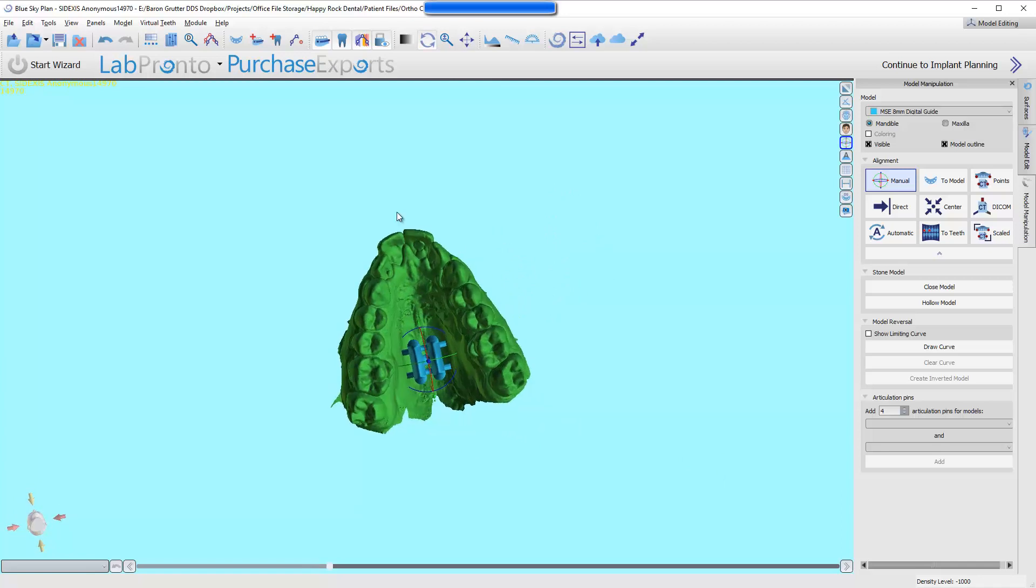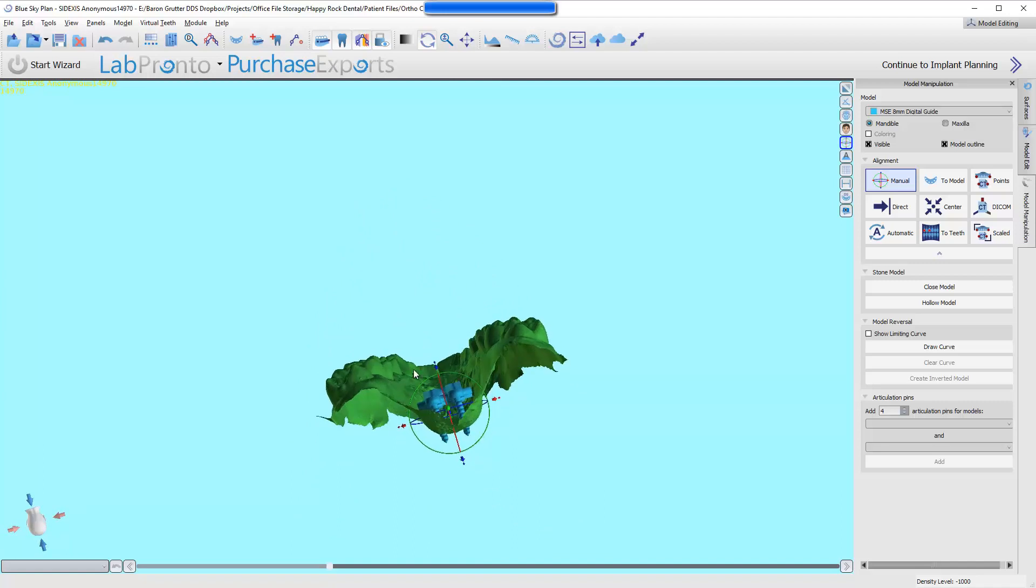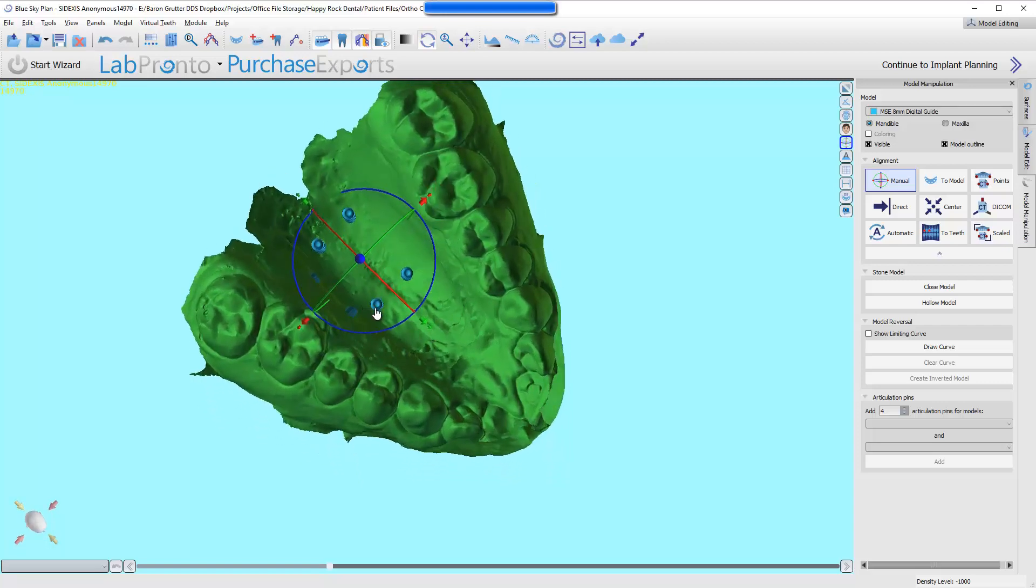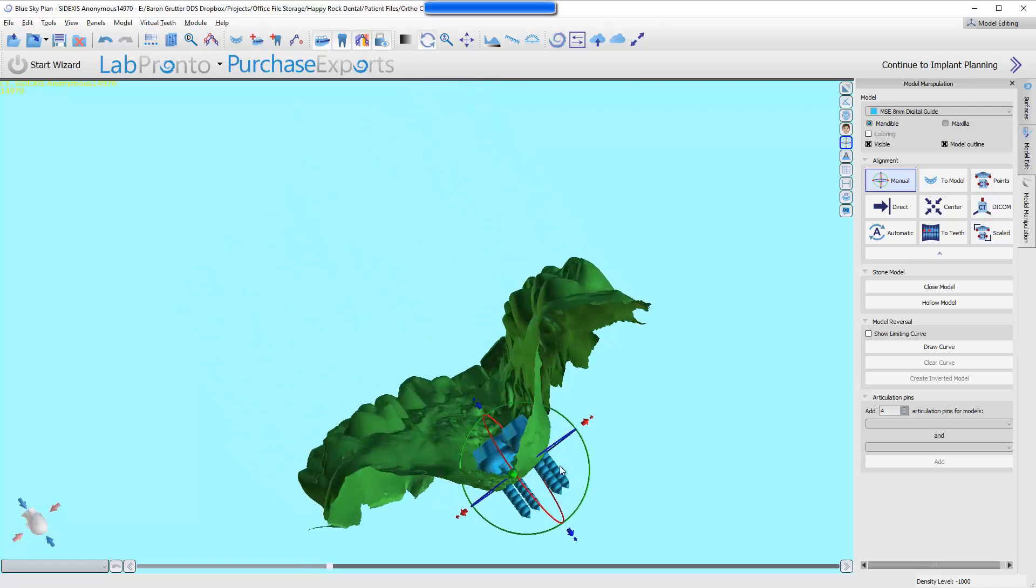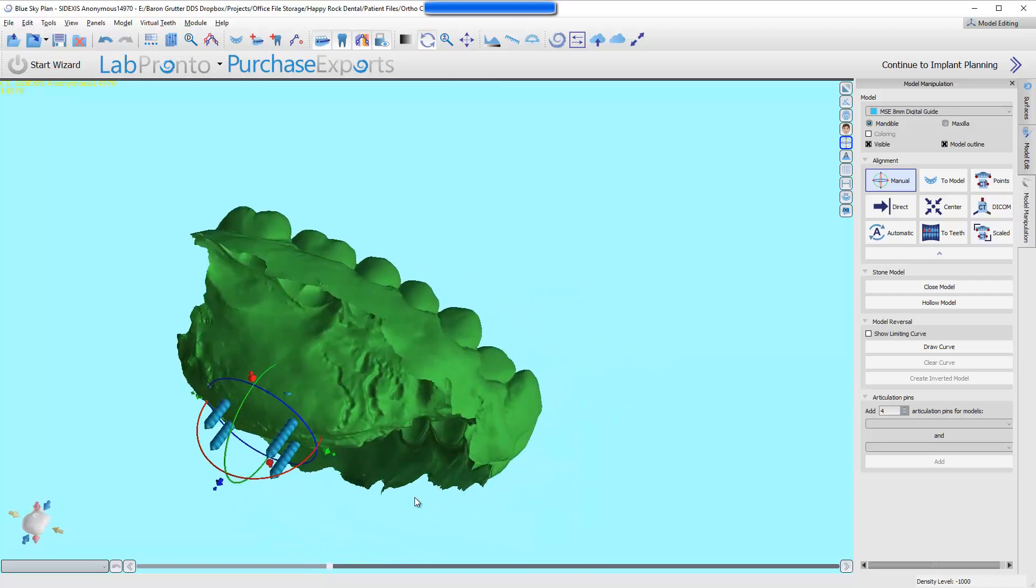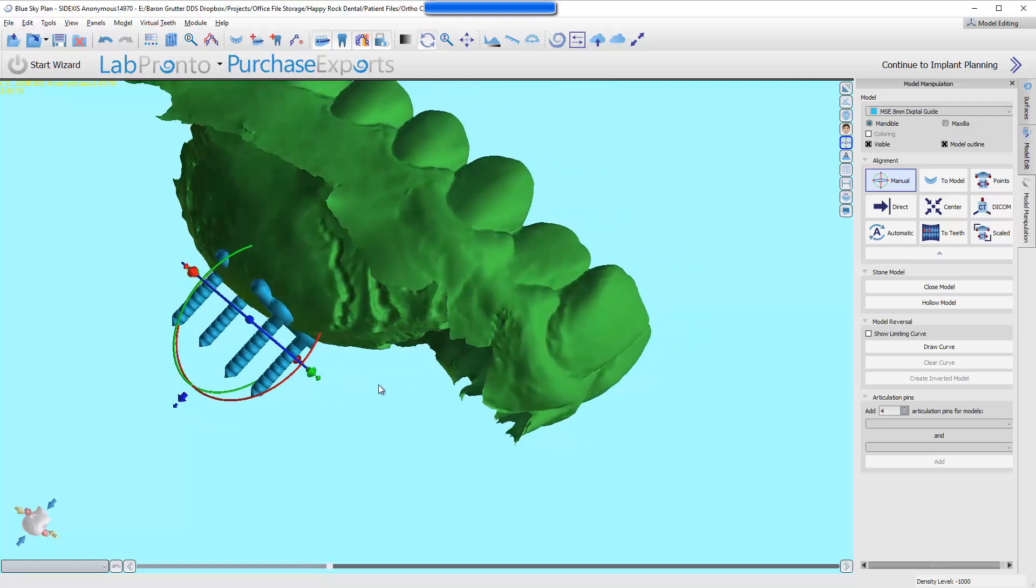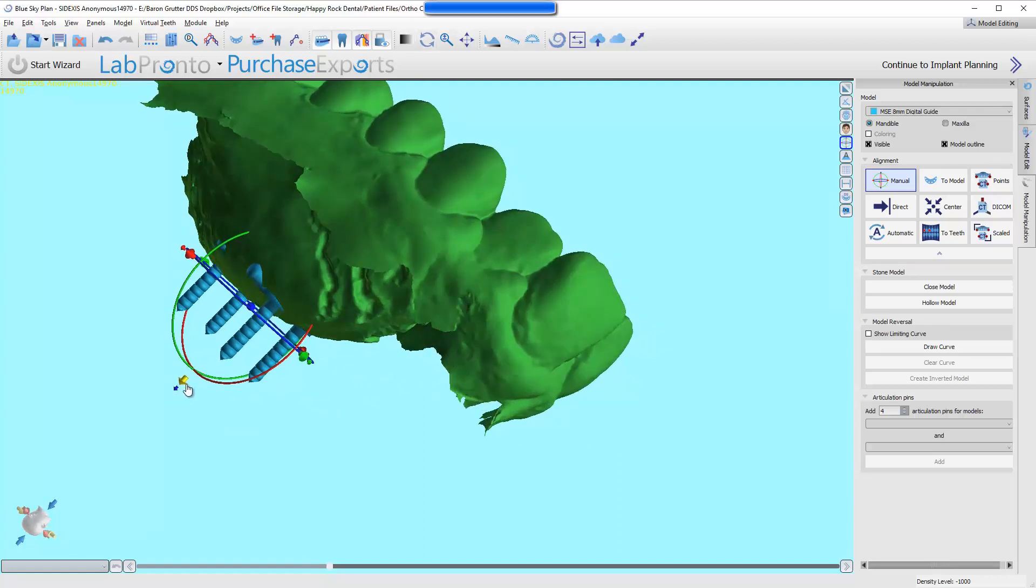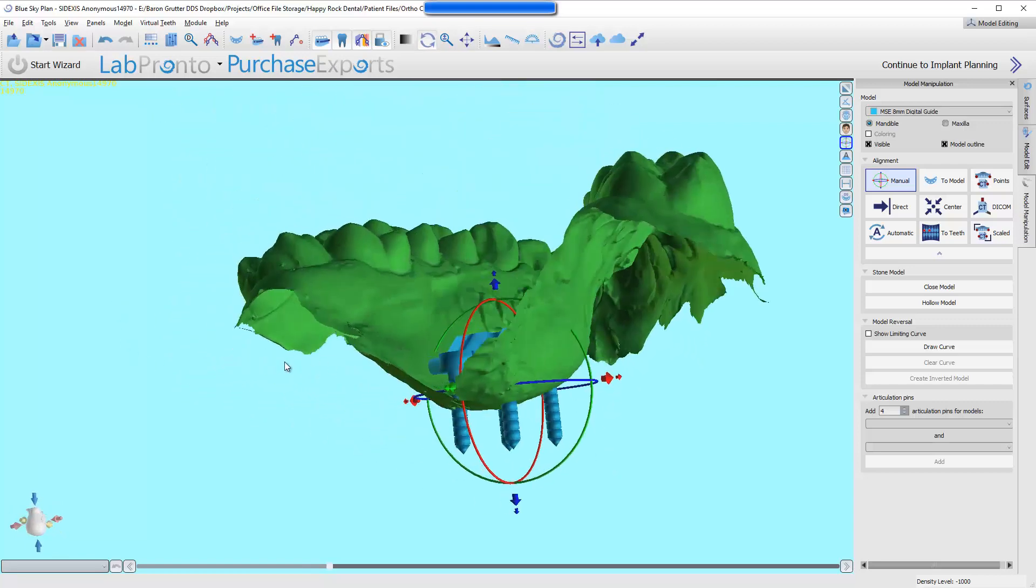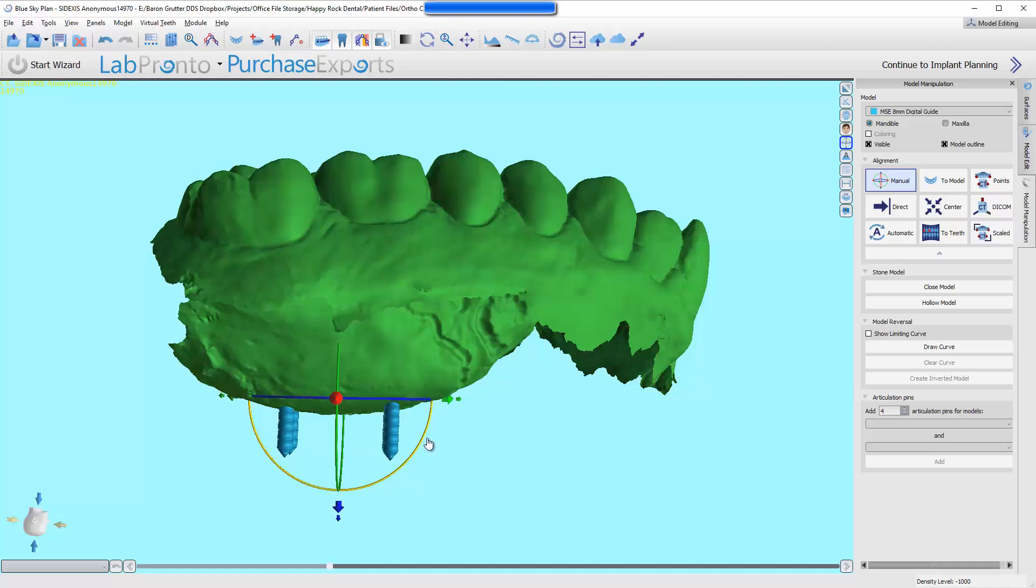In a perfect world, or at least the way this device is intended, it's supposed to be between the first molars. So, if we've got it right here, we can now look at depth, and we can drop it on down as far as we can go without the pins impeding the tissue, or as minimal impedance of tissue as possible. Now we can start to see how far in are we. When Igor made these files, he marked them with millimeter increments so we can know how far away it is. From this view, we've got 1 millimeter, 2 millimeter. We'd like to be at 2 millimeters, no more than 2 millimeters away. Right there, the front ones are at 2 millimeters, but the rear ones are much farther away, which tells me I'm going to have to tilt it forward.